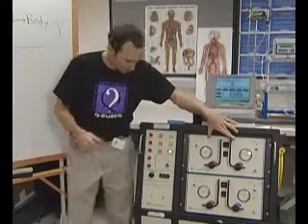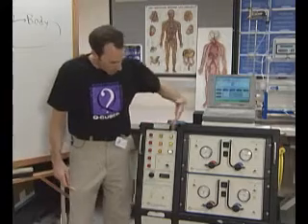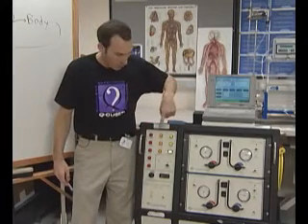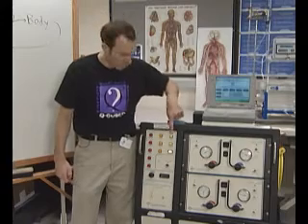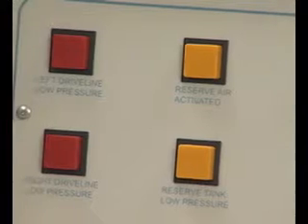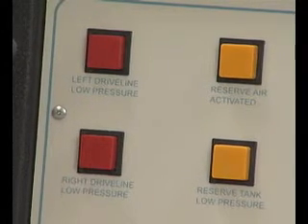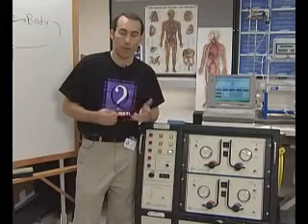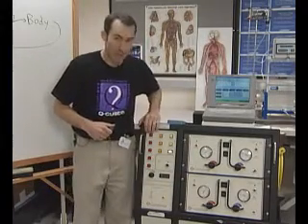This is our alarm panel on the console. There are more urgent alarms than others: yellow lets you know something needs to be changed but is not very urgent; orange is getting more serious; and red is absolutely serious, requiring a change within minutes.